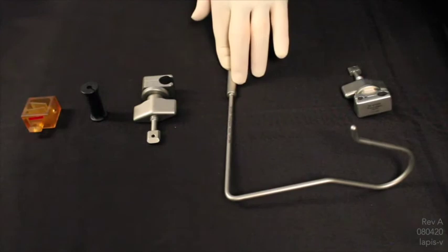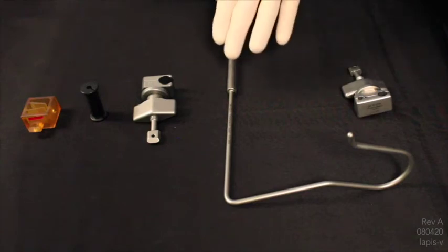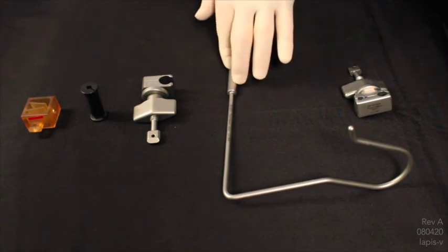Nathanson hooks, used for organ retraction, held in place by the rigid holder. They may also be used with a laparoscopic articulating arm or flexible laparoscopic holder by using the duo head attachment. The Nathanson hooks also come in small, medium and large.